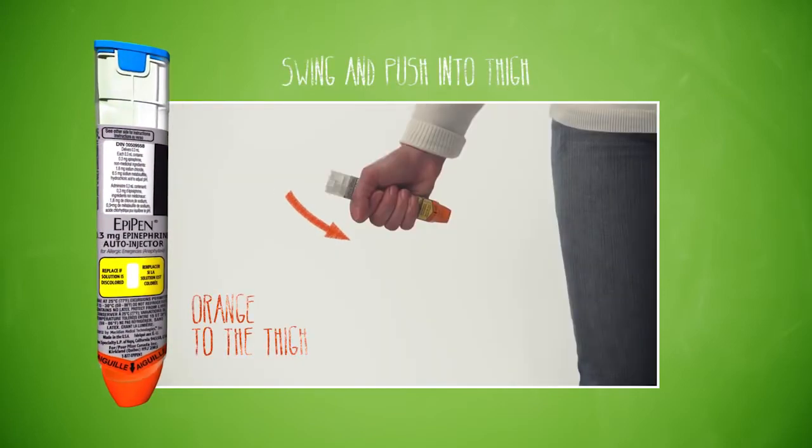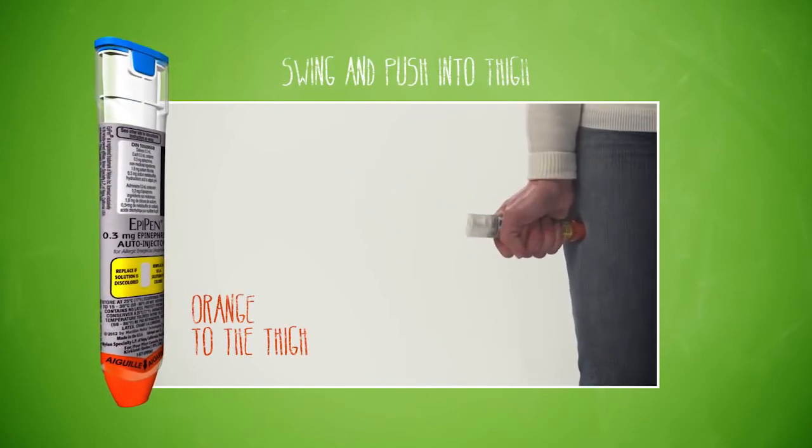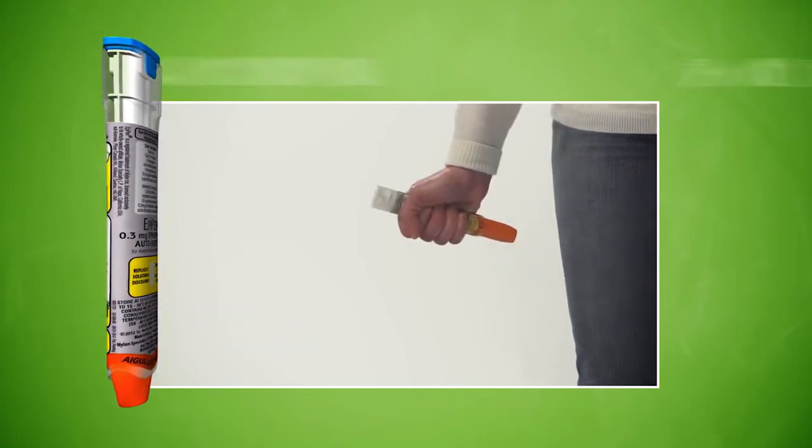Orange to the thigh. Swing and push the orange tip firmly into your mid-outer thigh until you hear a click. And hold on your thigh for several seconds.